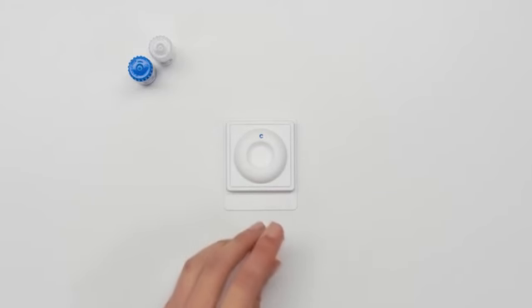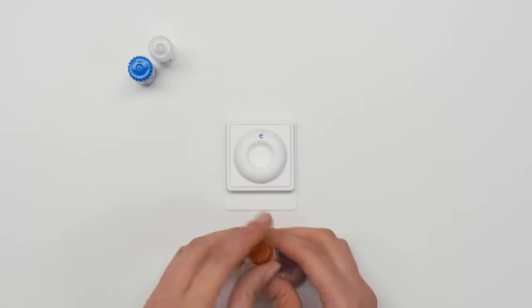Bottle one. Shake bottle four times and pour all of the liquid into the test device.